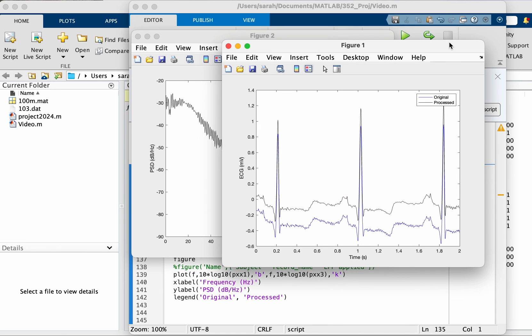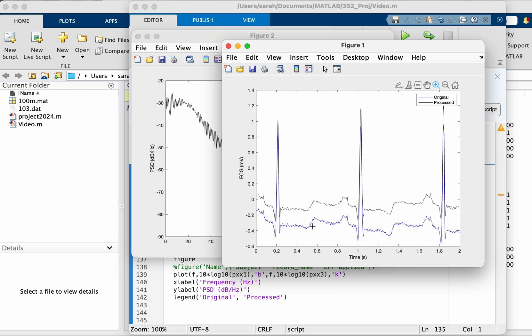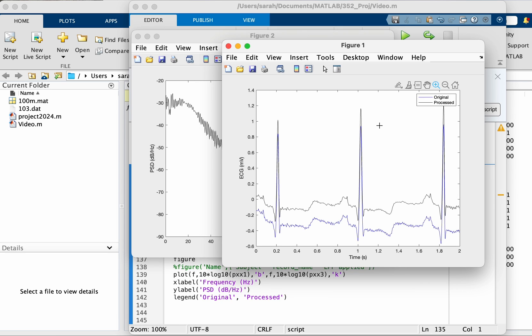We removed high frequency, we removed the notch, we removed low frequency, DC offset. And in the time domain this is what it looks like. The harsher your limits for the filters, the smoother the result will be, but then it's at the risk of losing some information that you might need. So it's better to look into the literature and see for your specific application what range can you use.